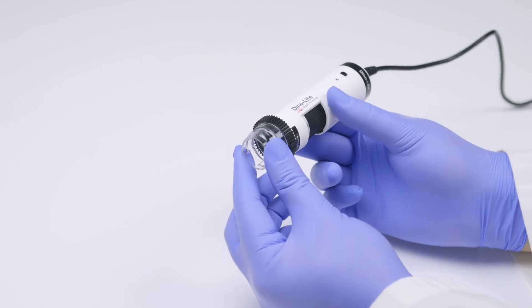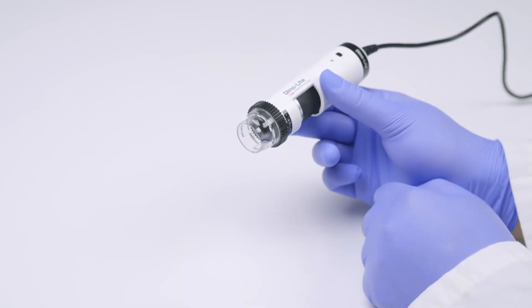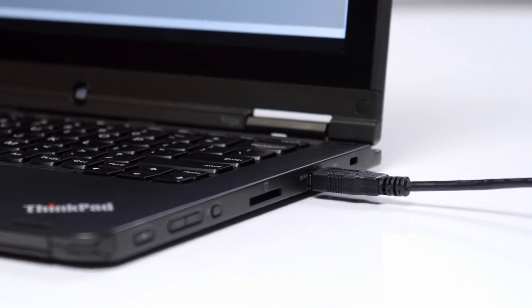The first thing you're going to want to do is attach the interchangeable cap to the dermascope like so. Plug the USB into the computer and launch the software.